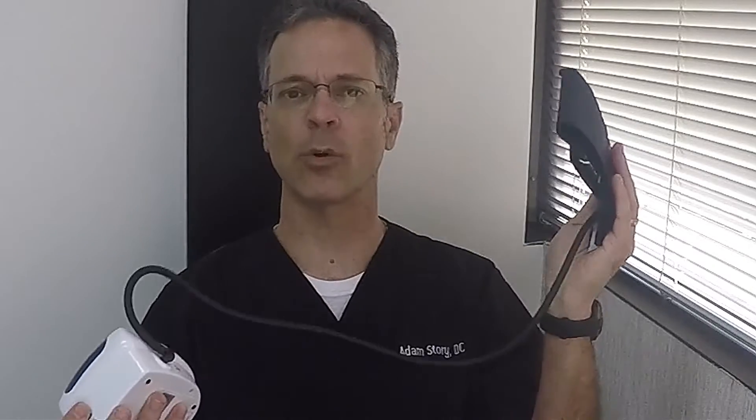There are some that are used on the wrist. I don't personally like these, but they are convenient. The best ones are ones that go around your arm and mimic a normal blood pressure machine — it's just an automatic blood pressure machine.